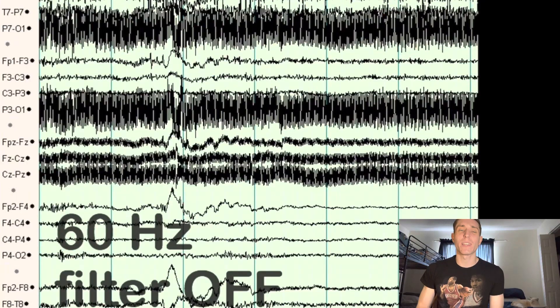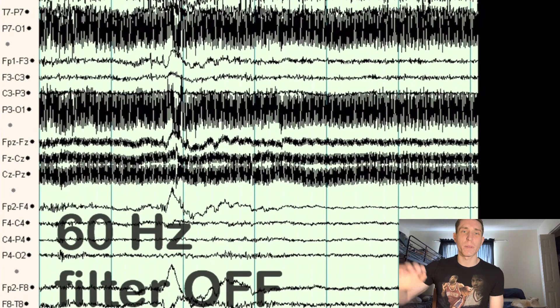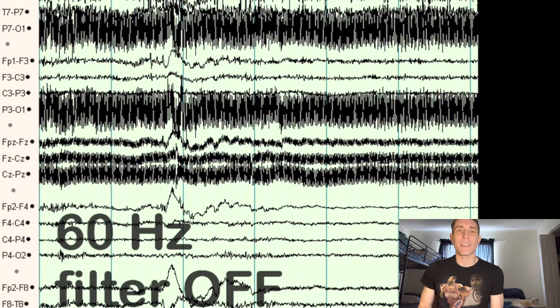We also have electrical interference that comes from beds being plugged in, different medical equipment. You'll be seeing this a lot in the ICU, you're going to see 60 hertz interference on your EEG. Now I have a picture of this I'm showing in a few of these channels, it looks almost like black, that's the 60 hertz.